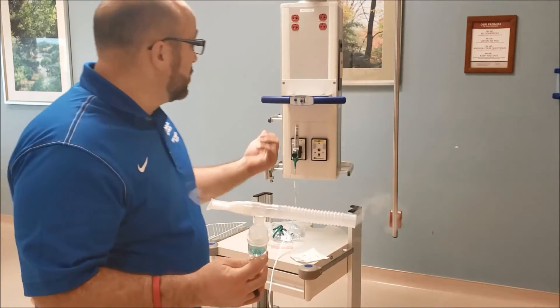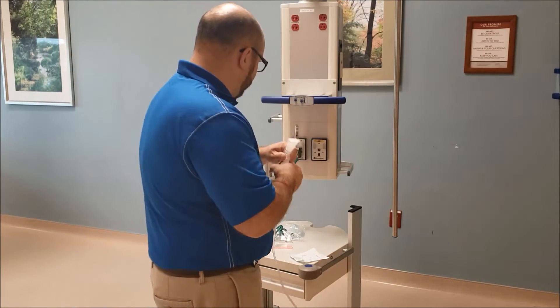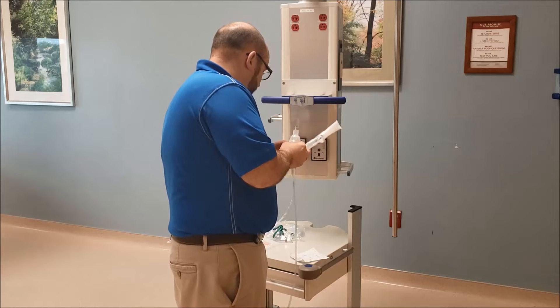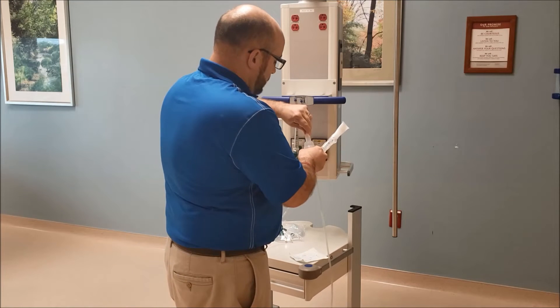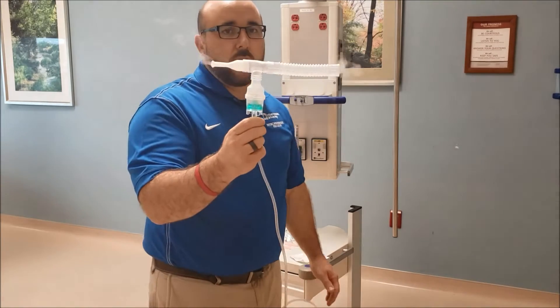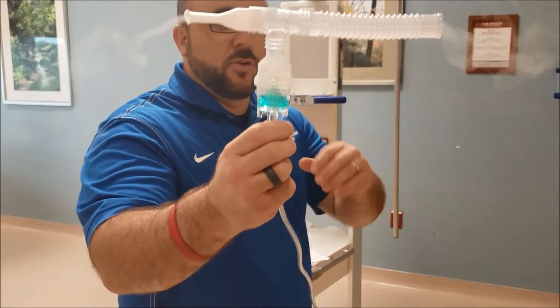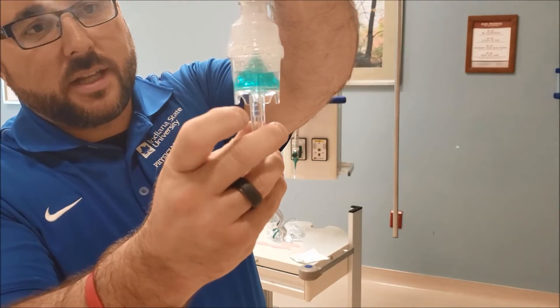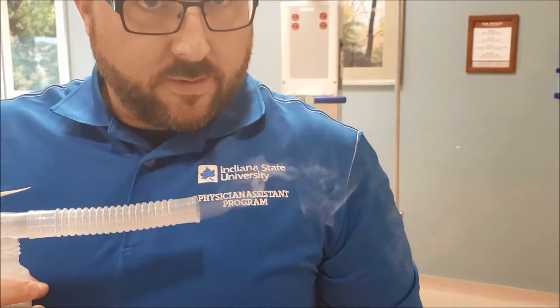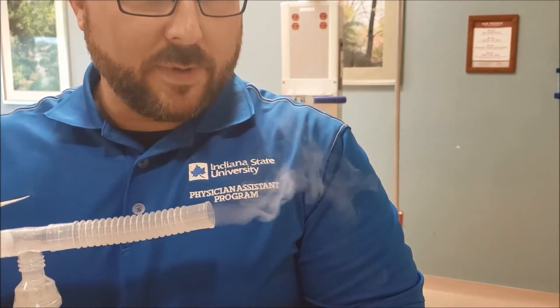That didn't take really long because I'm using the compressed oxygen off the wall, but it's still running eight liters. So let's put some more medication in there. We're running again — you can hear the change in sound. Really nice and smooth. You can see the nebulized saline on the bottom — see it coming out, see it on my blue shirt there. That's all the nebulized medication coming out.